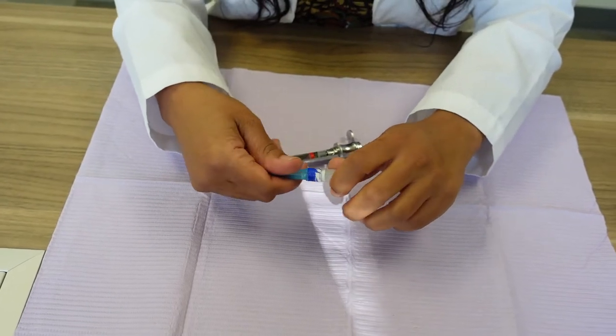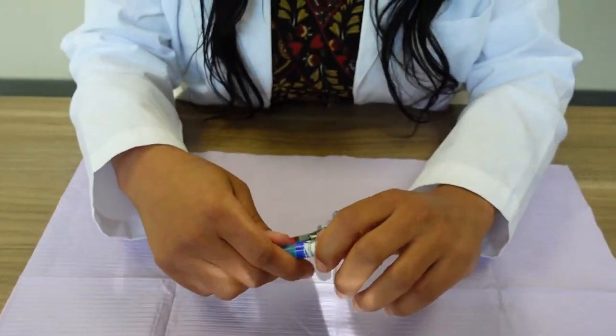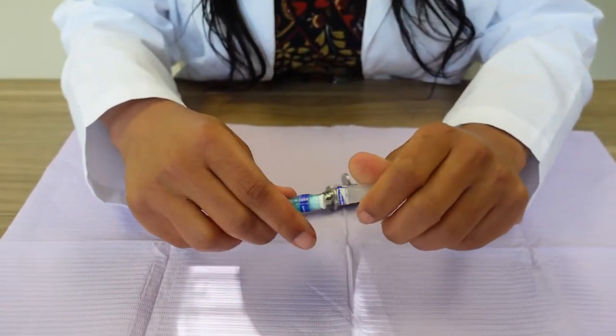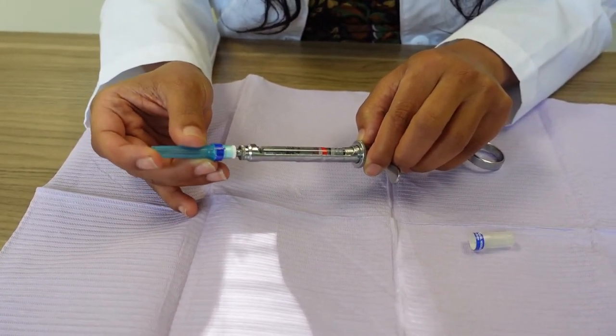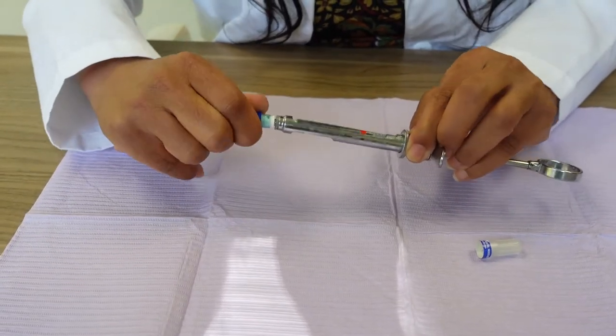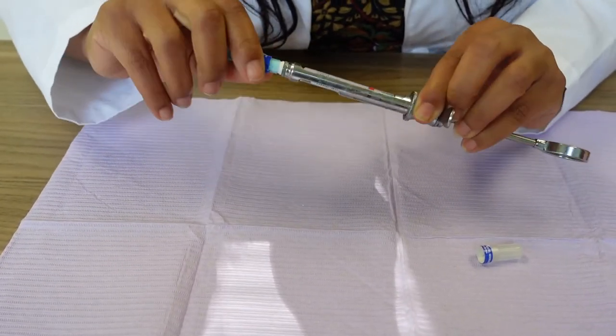Now we're going to take this. This is a short needle and I'm going to be extra careful. A short needle. All right, always be really careful. You're going to push it in all the way, tighten it up. Make sure it's tight.